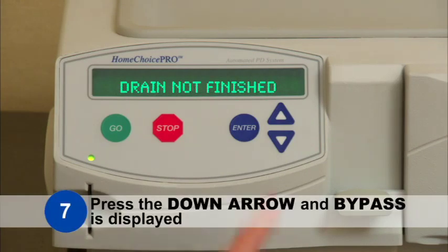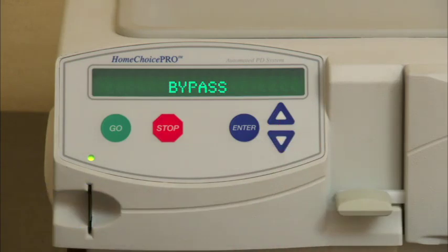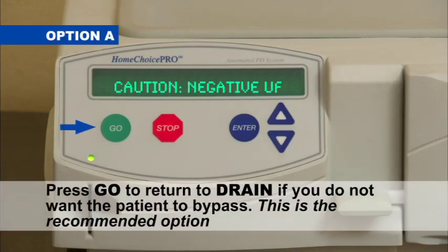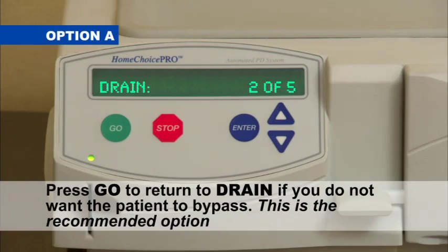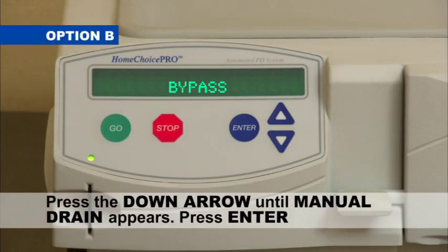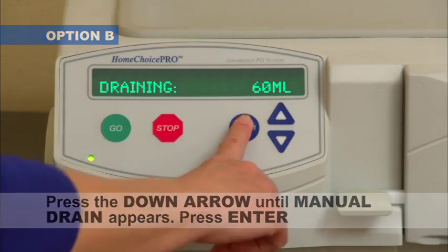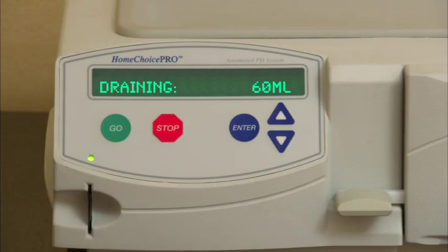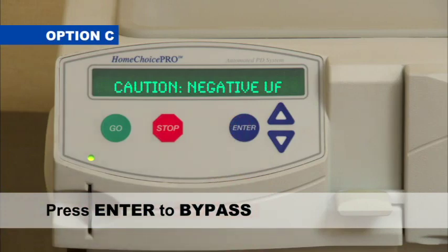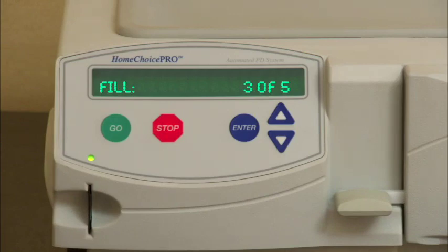Step 7: Press the down arrow again and Bypass will be displayed. You will then need to select one of the following options. Option A: Press Go to return to drain if you do not want the patient to bypass — this is the recommended option. Option B: Press the down arrow until Manual Drain appears, then press Enter to initiate a manual drain. Option C: Press Enter to bypass. Make sure to train your patients on when it is safe to bypass so they know when it is appropriate to do so. Your patient will have bypassed the caution negative UF alarm.